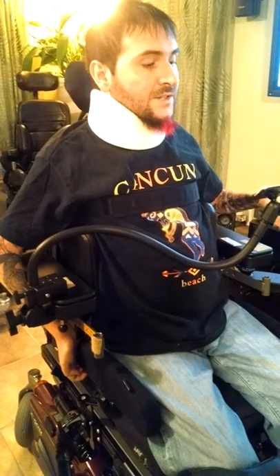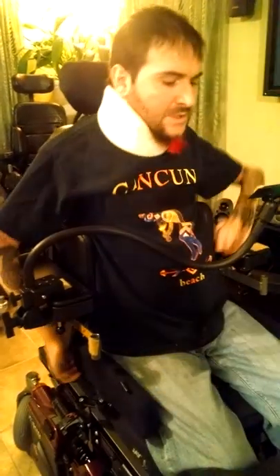Hey, this is Robert Florio, the artist. I am looking at the Flexarm from broadenhorizon.com. It's kind of cool. I have it attached to my Permobile 350.